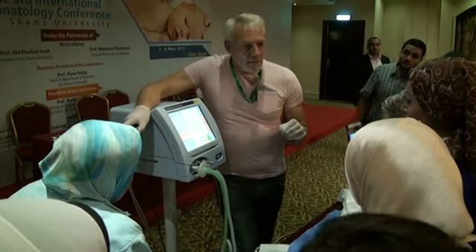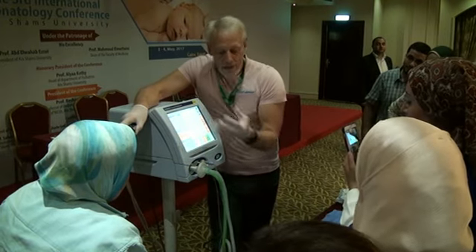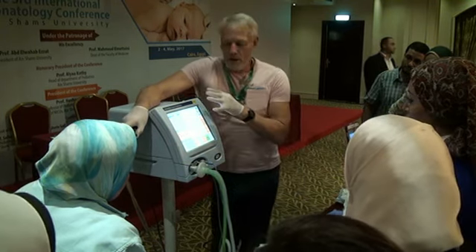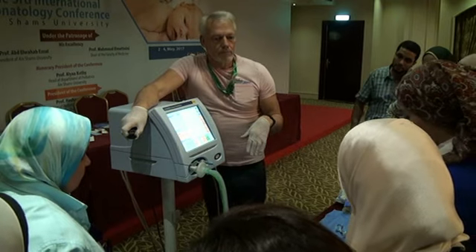Now sometimes, in a very non-compliant lung, that simple switch, that simple timing, imagine if you have to stop this and put on a sensor medics, your whole lung collapses again, which is why we like ventilators that are all in one. But this is still not a fully recruited lung.